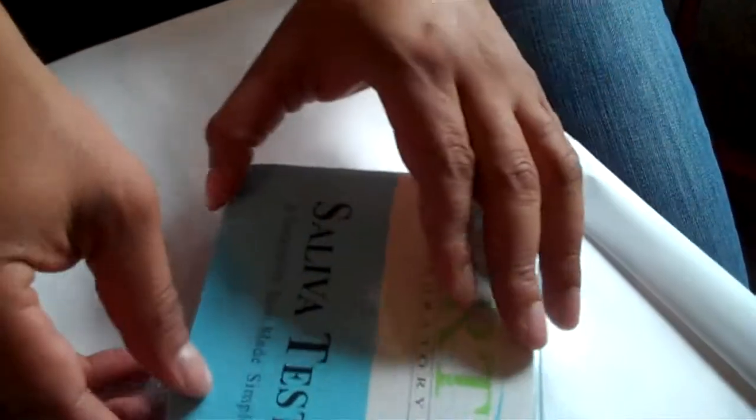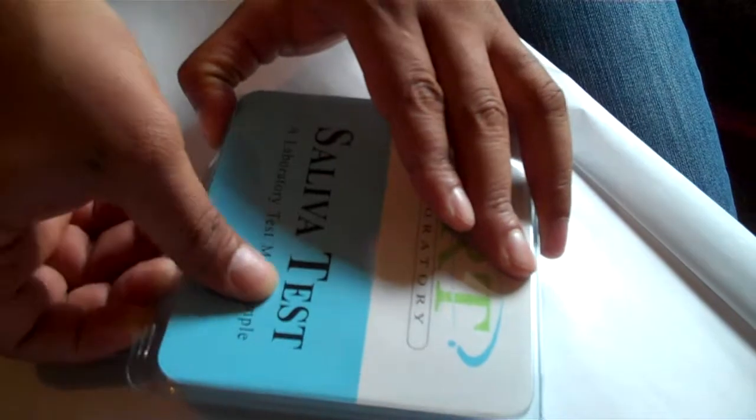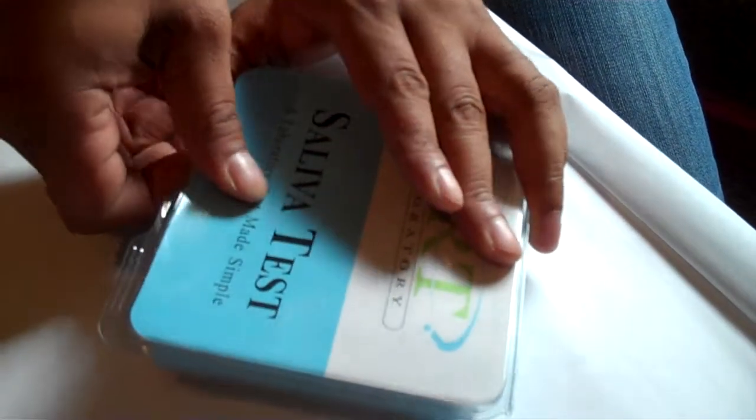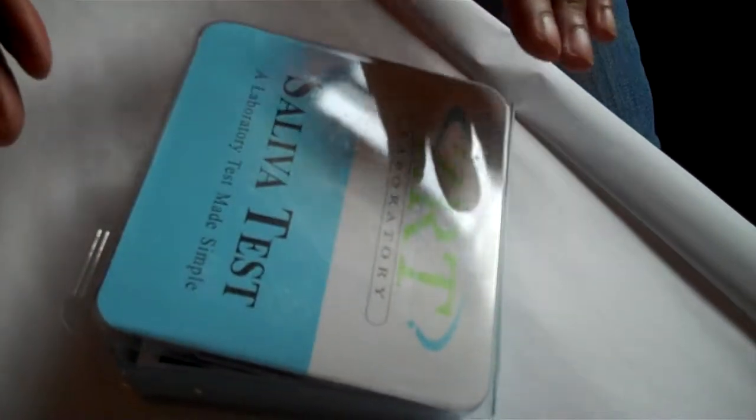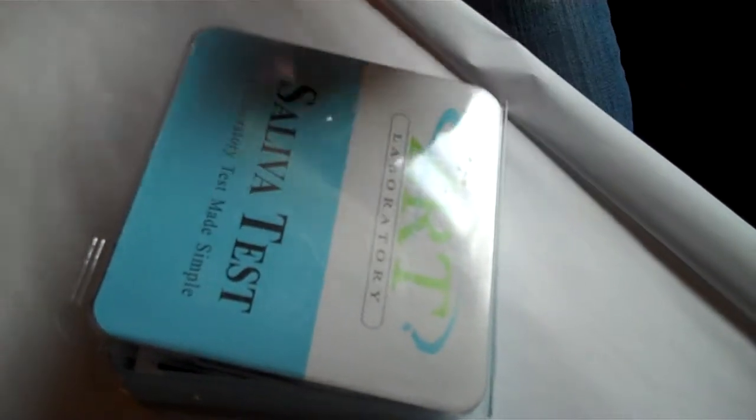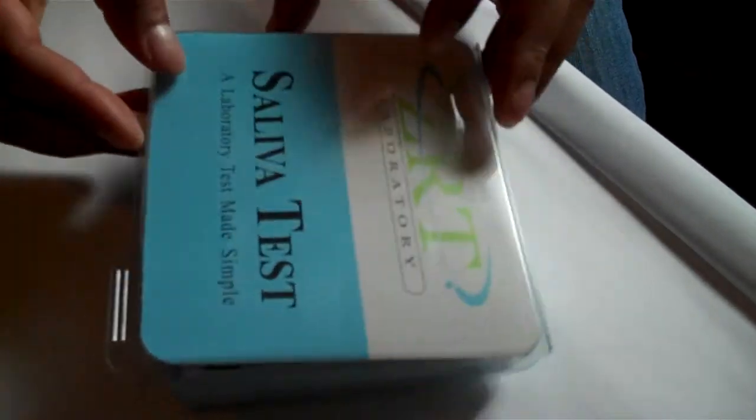You will be receiving this test in the mail, priority mail. Once you get it, it's very important. First thing in the morning, you're going to complete this test. You want to do this before you've had anything to drink or anything to eat. So you do it first thing in the morning. That's going to help provide your most accurate test.